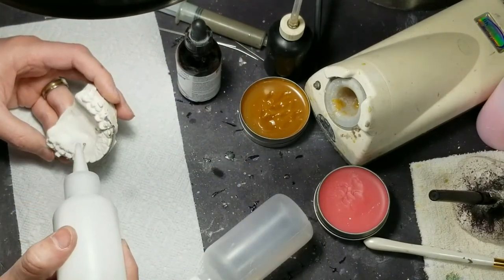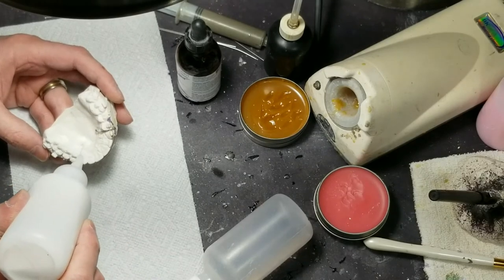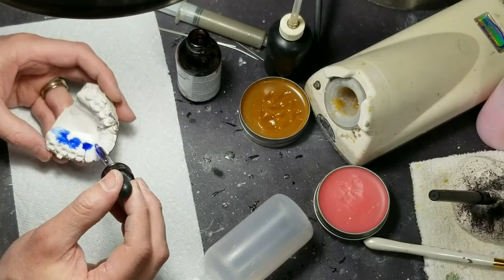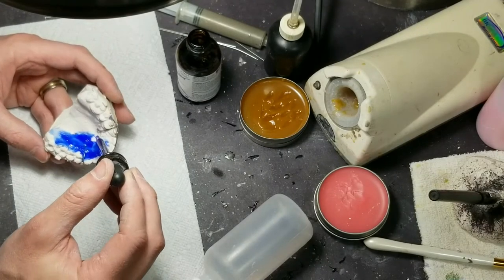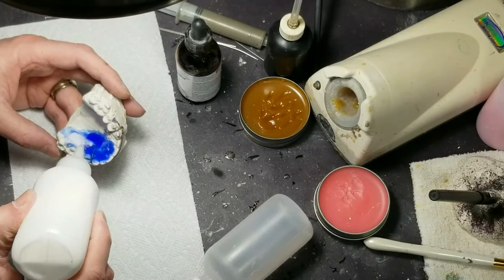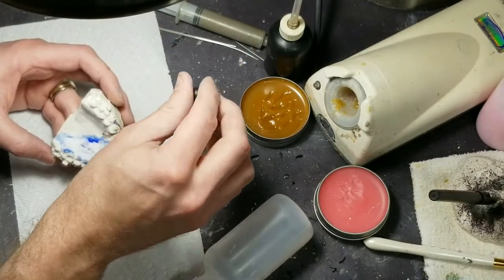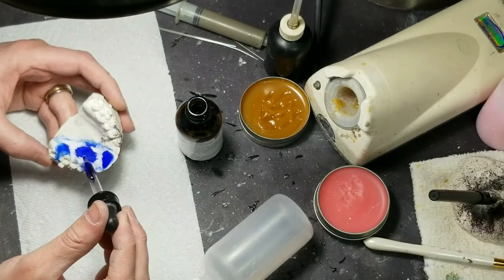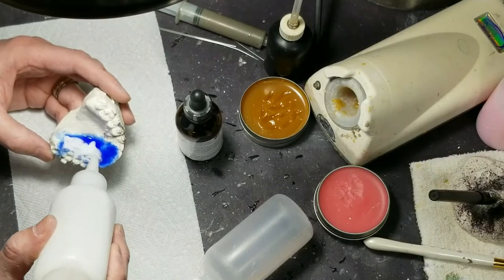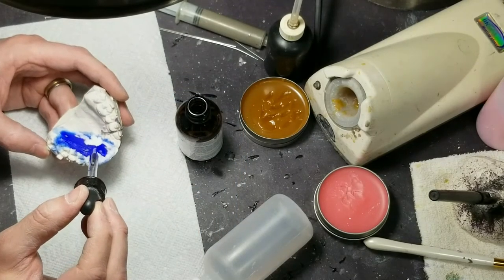Yeah, it's very bad — and I bet it's a cheaper option for printing materials. The JBC acrylic-to-acrylic separator — I've heard it's really good stuff, pretty much universal. Danilo, it'll be recorded — you can go back later and watch it. I'm trying to get these situated where my hands aren't in the way too bad. Can you smell it now? No — because you grew up in a lab.